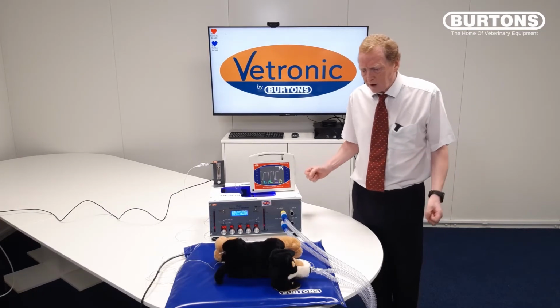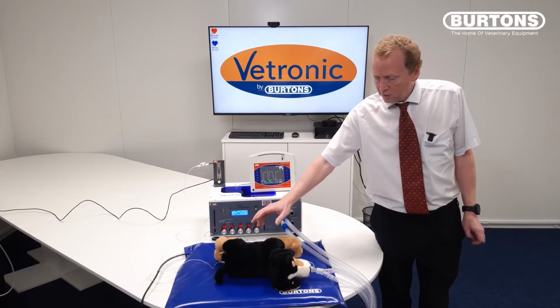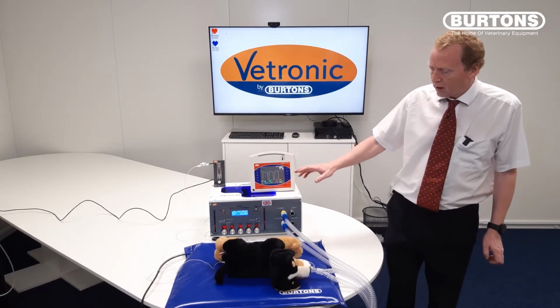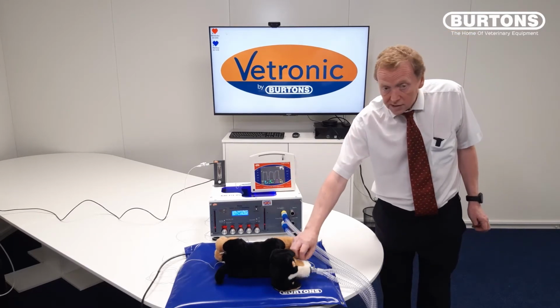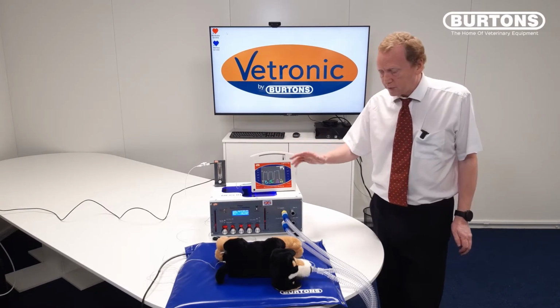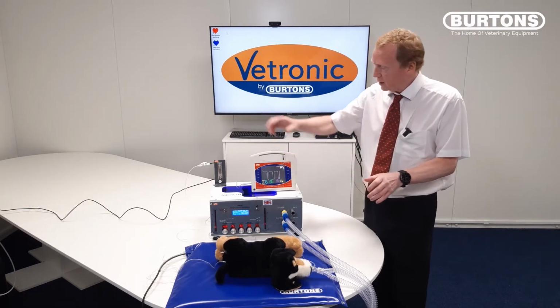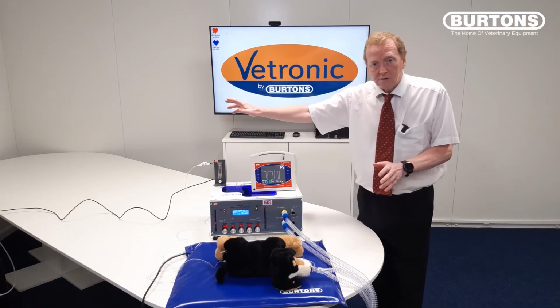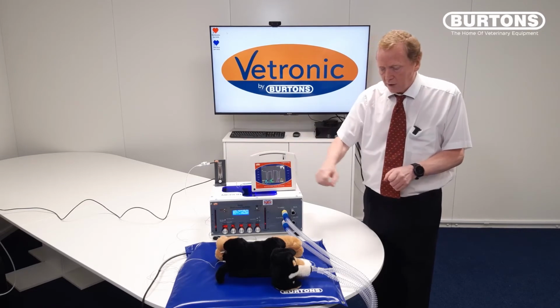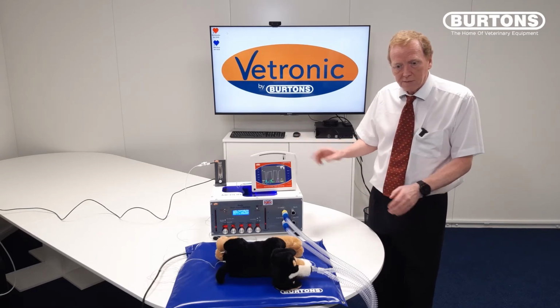So to explain the setup we've got here, we have an Annequin, which is basically a stuffed animal with an artificial lung incorporated in it that we're able to ventilate from a ventilator. This animal is being monitored by a side stream device here, feeding into our monitor. Just to explain, if you purchase the Annequin system, it will come with the animal. It'll come with a little flow meter and the tubing to connect to a CO2 canister. It'll also include the tubing to feed into the animal, but doesn't include any of the anaesthetic circuit, obviously, or the monitor or the ventilator.